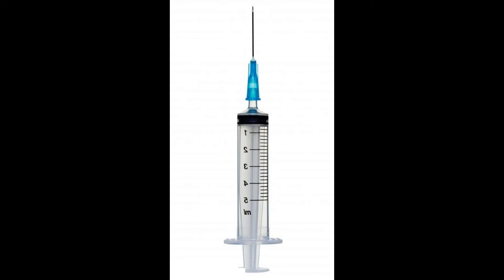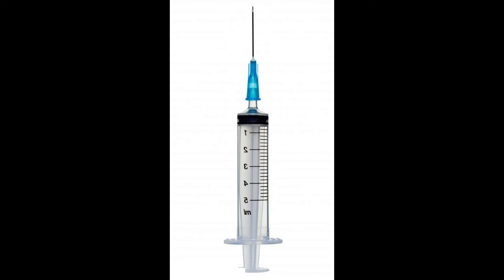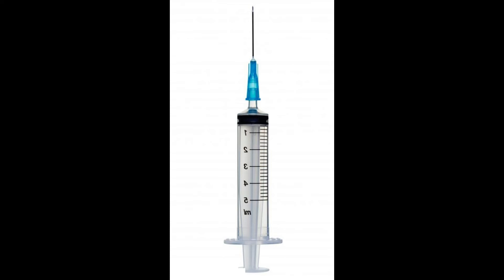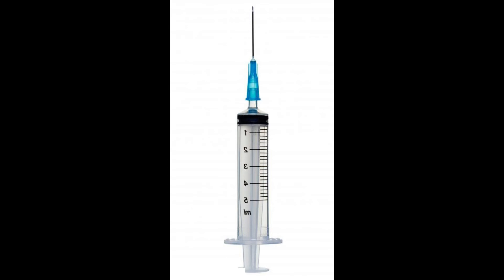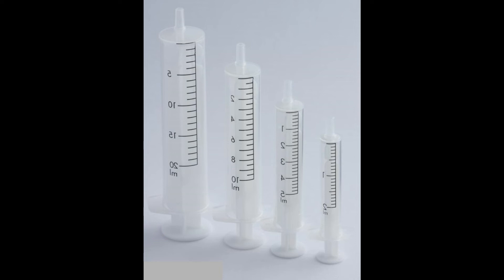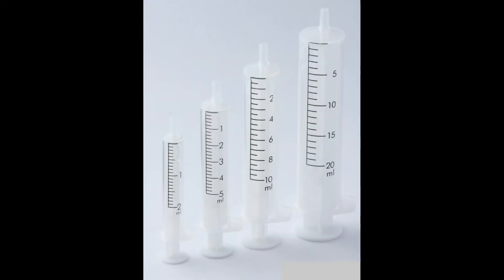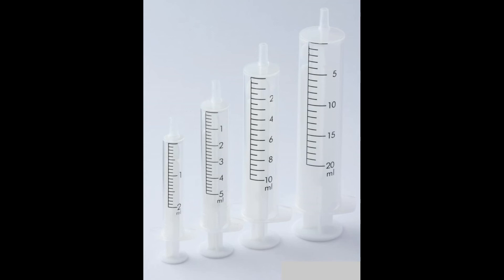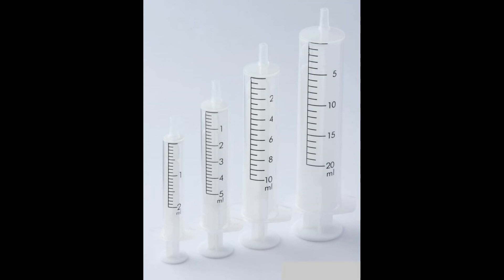There are other types of syringes that do not include a needle as a component of their design. These include oral syringes, which most often are used to dispense liquids to babies or small children. Oral syringes differ from standard syringes only because of their tapered tip in place of a needle, so the same sizes are used to indicate how much liquid can be contained within the cylinder.